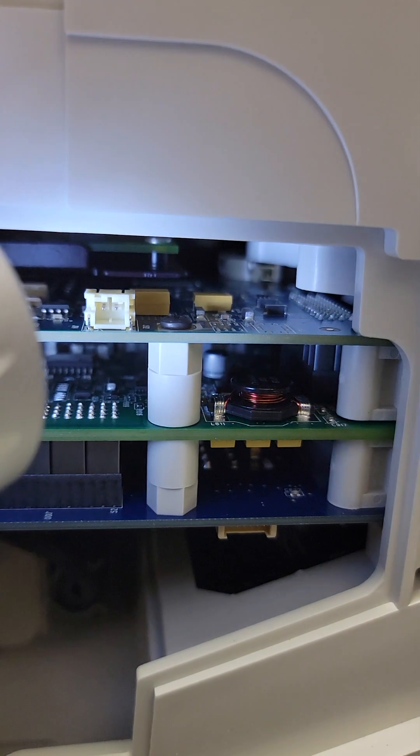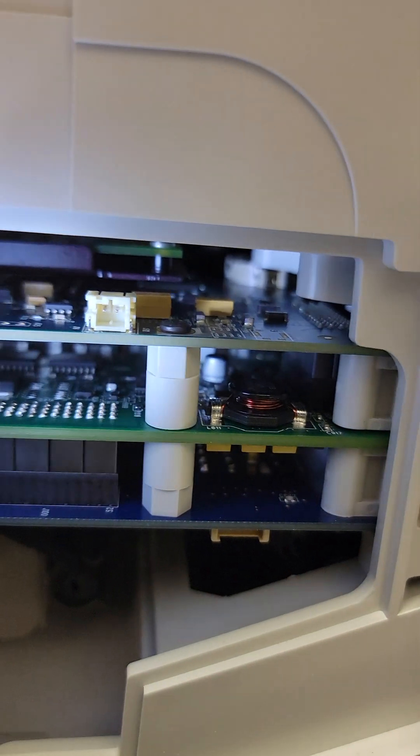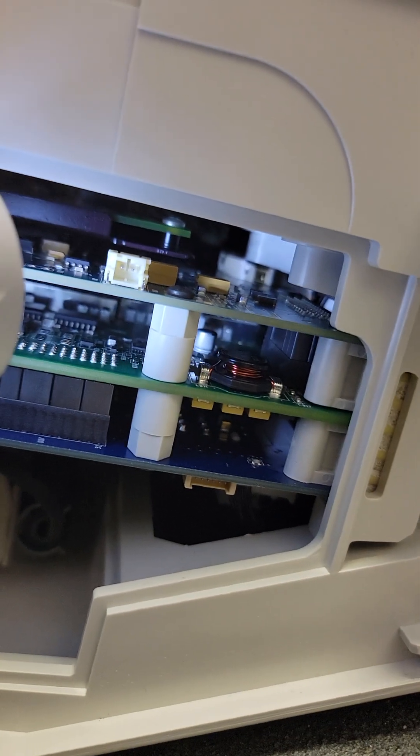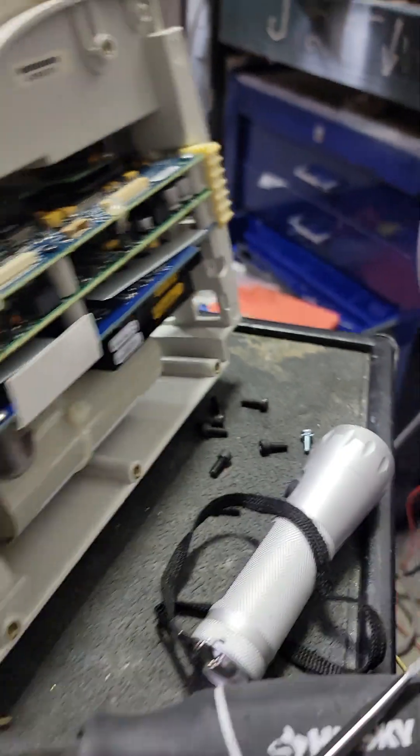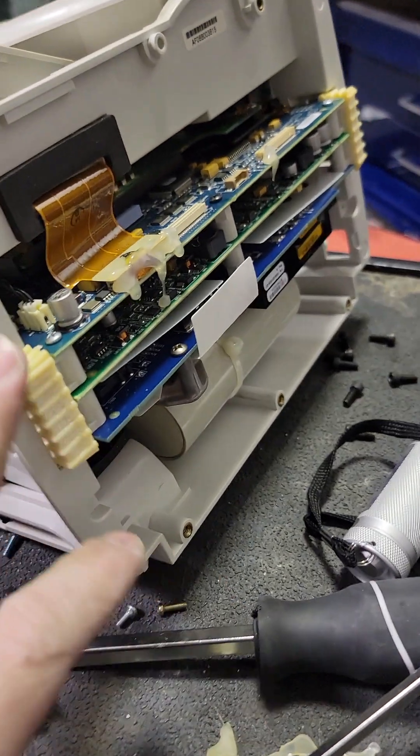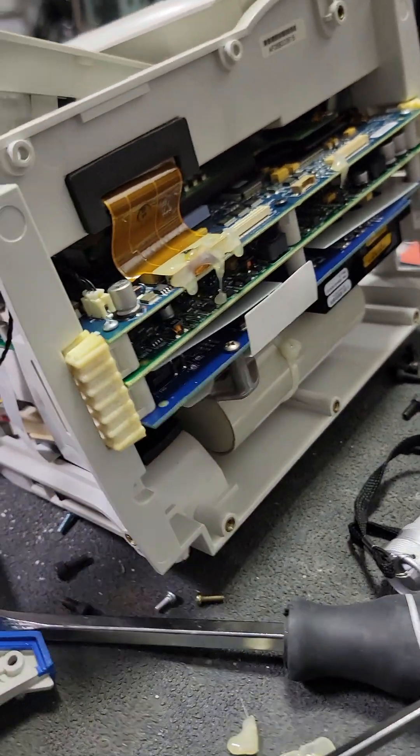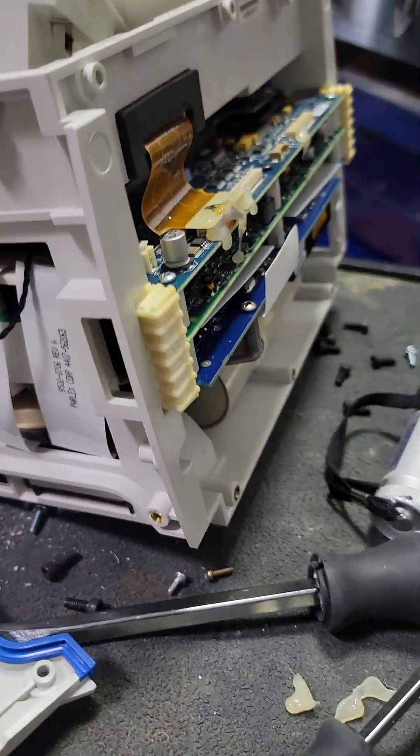Now I can see the coin cell right there. See that white, round piece? Any better than that right there, that's your coin cell. I have a sec, I'll make this easy. I'll have to get this assembly out in order to get to that.